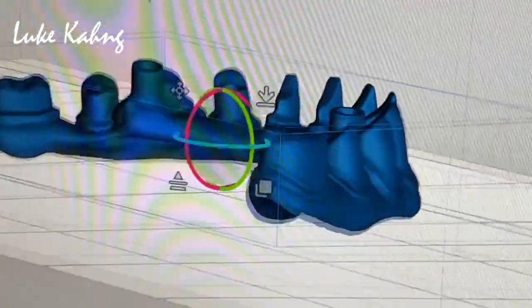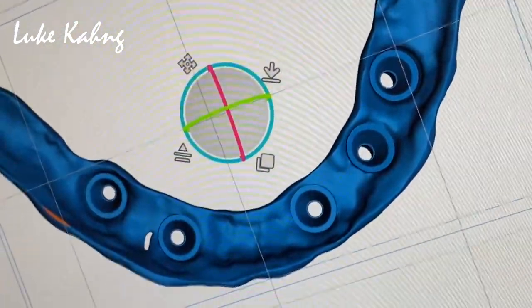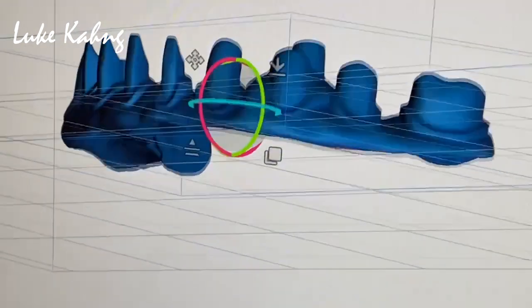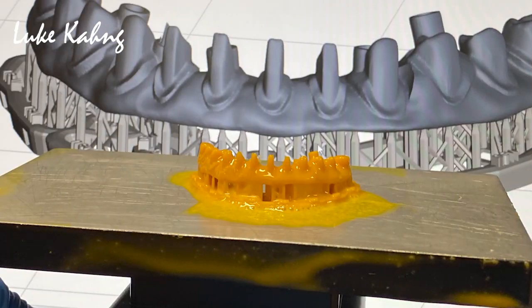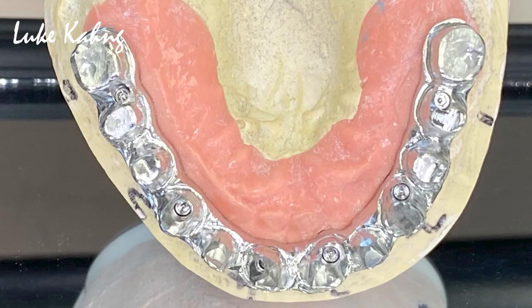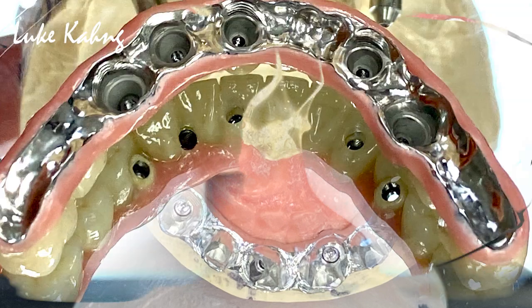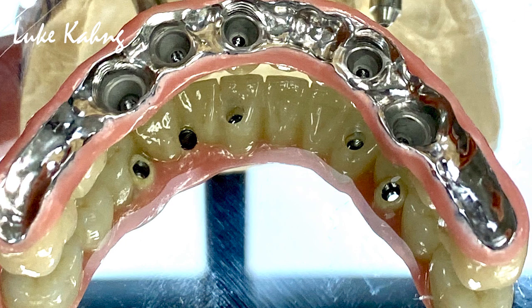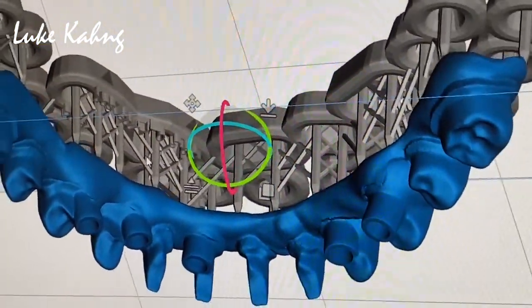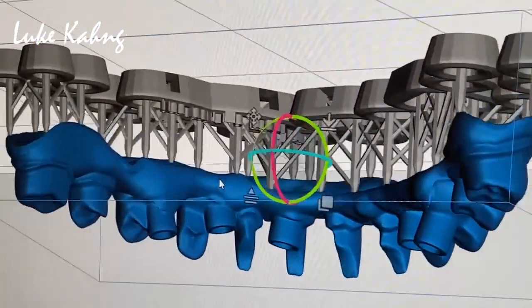So this is a great frame for the trim underneath, and then I can add a little bit here and there. So we're going to print it with the wax with the new materials.